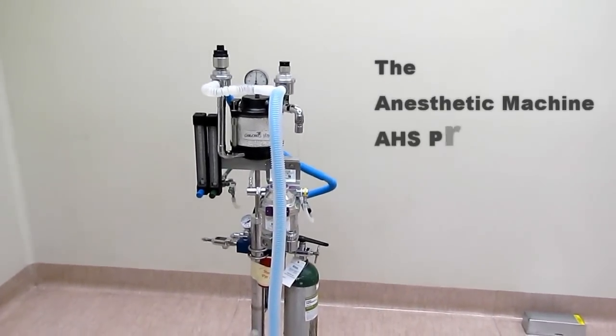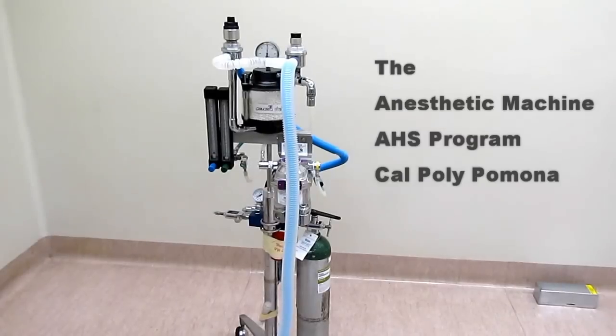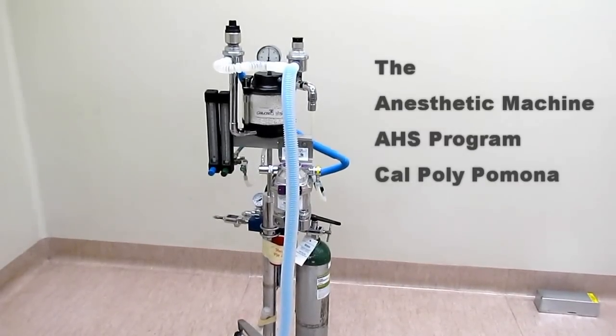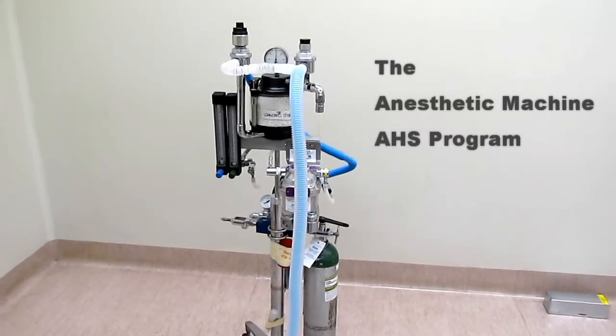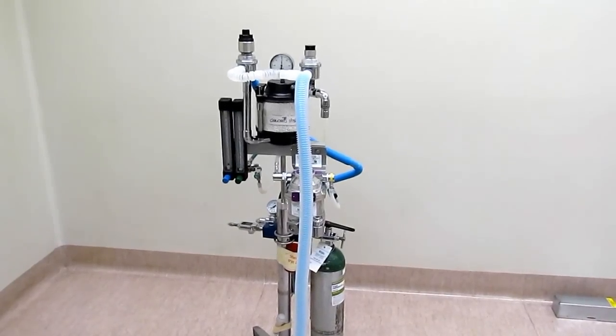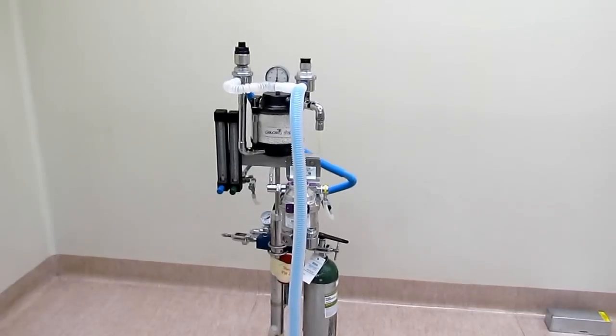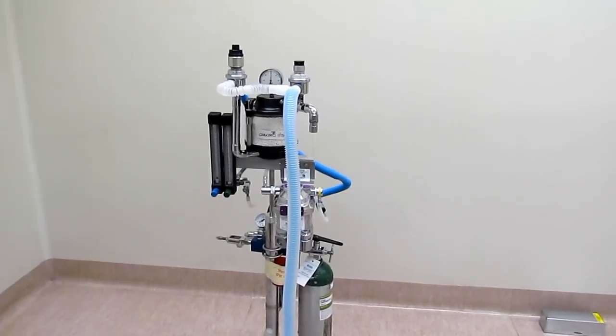Hello and welcome to this video tutorial on the anesthetic machine. The machine featured here actually resembles very closely the machine pictured in your book. So we are going to go through each component of this machine and make it clear where it is and what it does, just as we discussed in lecture.